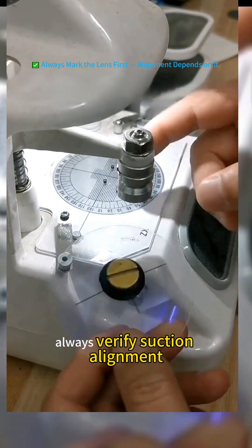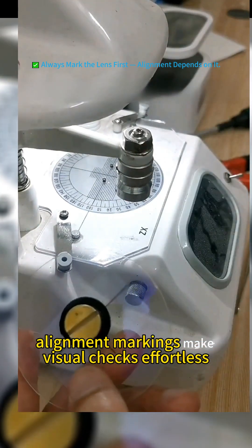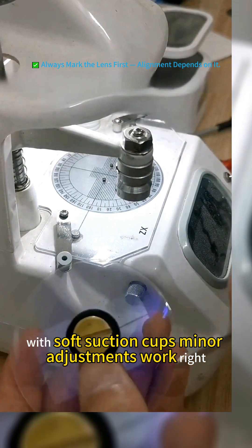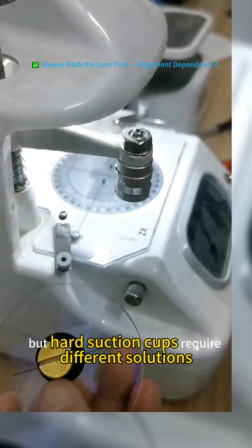How to fix this? Always verify suction alignment. Alignment markings make visual checks effortless. With soft suction cups, minor adjustments work, right? But hard suction cups require different solutions.